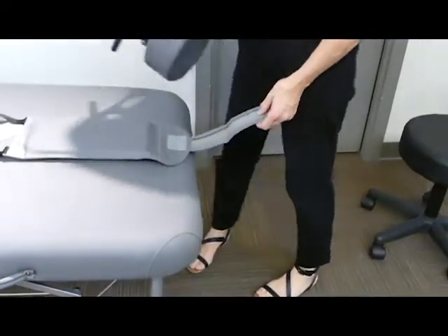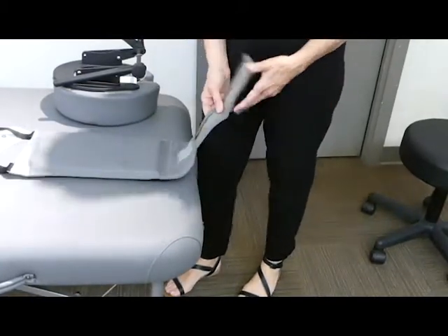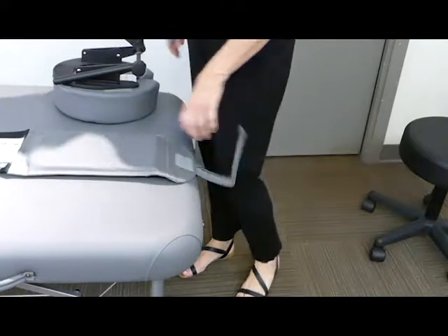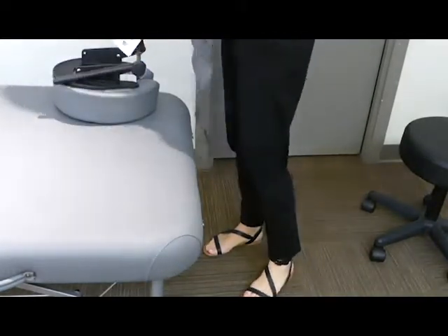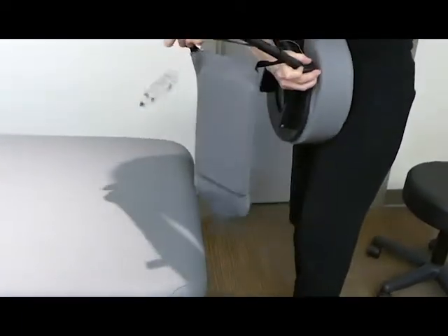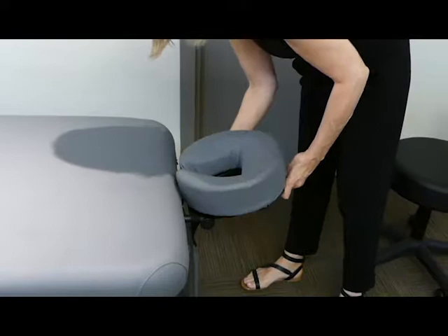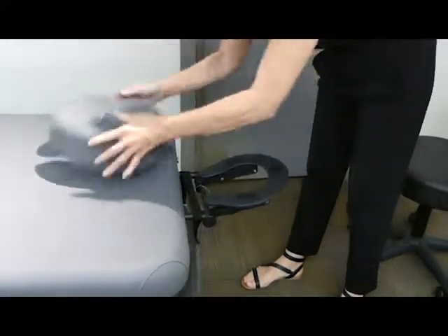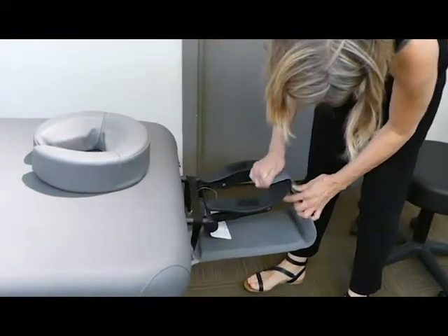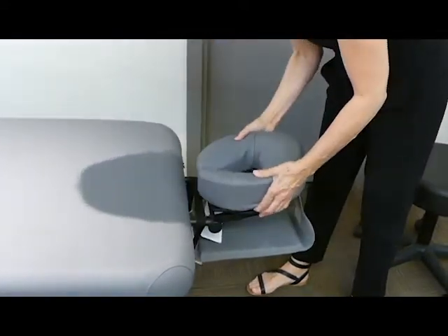Here's the sling. The special feature of the sling is the fact that it has a piece of velcro here. This really stabilizes it so there's not a lot of lateral movement, instead of just having straps on both sides or both ends. You just loop this over the two ends before you put your face cradle into the table, and you insert your face cradle. Pop up your face cushion — you can take the face cushion off — and then you just adjust your arm rest by wrapping that around and applying it onto the velcro very firmly. Then you place the cushion over top.